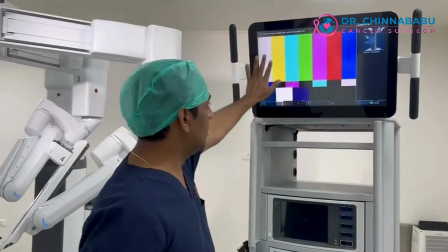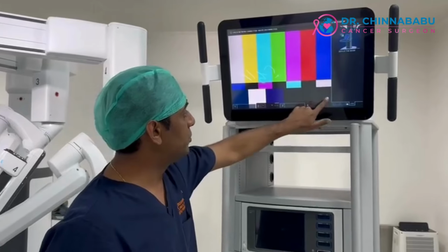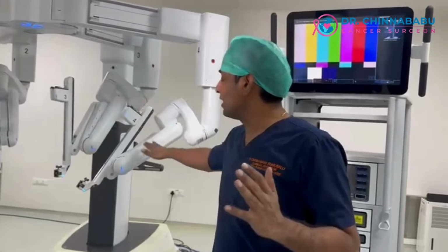So training can be done. You can say where to go. All this kind of markings can be done. This can be erased. So that is the beauty of this surgery, what we can do. Training is possible. You can teach youngsters how to operate by just looking at this cart and asking them to learn the technique of robotic surgery. So I mentioned 3 things: surgical console, patient cart, and vision cart. These are the 3 parts of the robotic system.